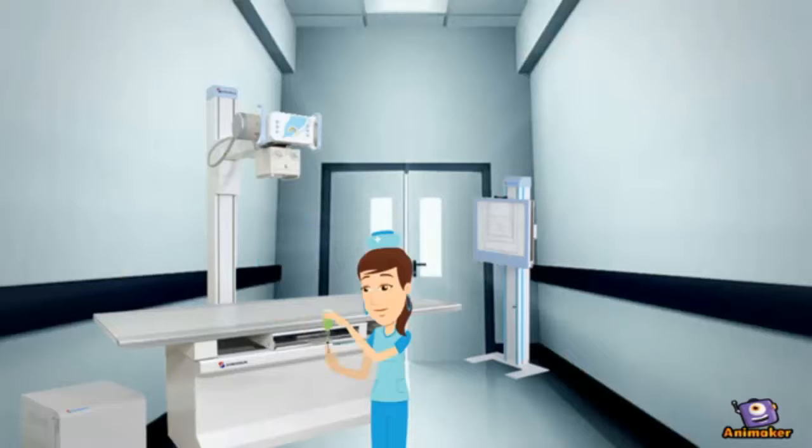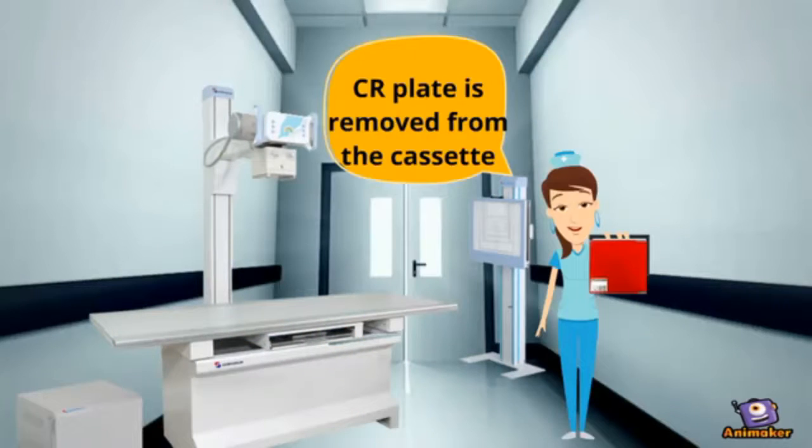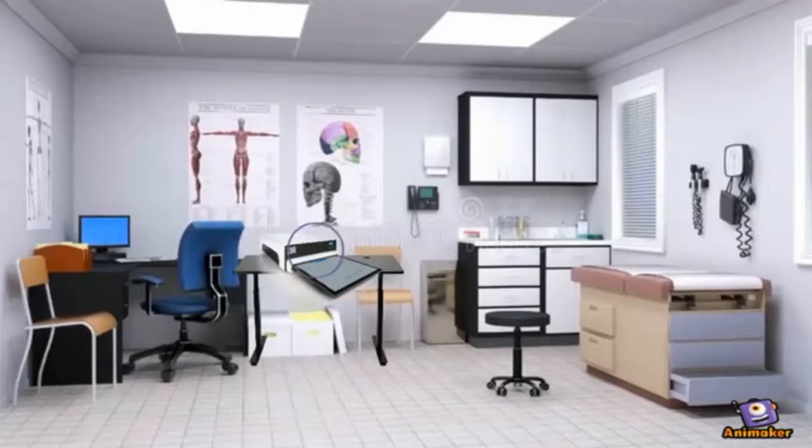After the exposure of X-ray, the CR plate is mechanically removed from the cassette and the CR plate is placed into the CR reader unit.